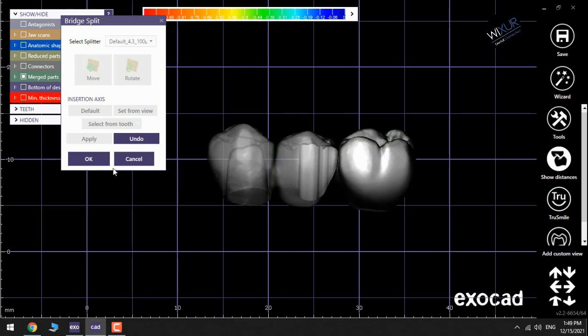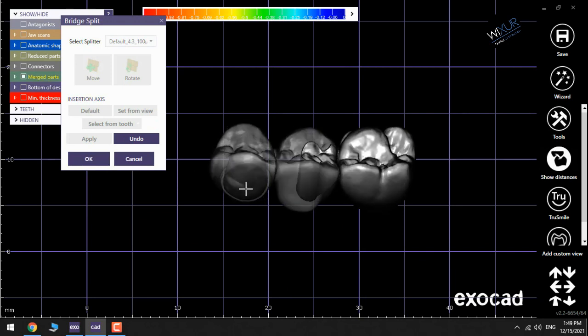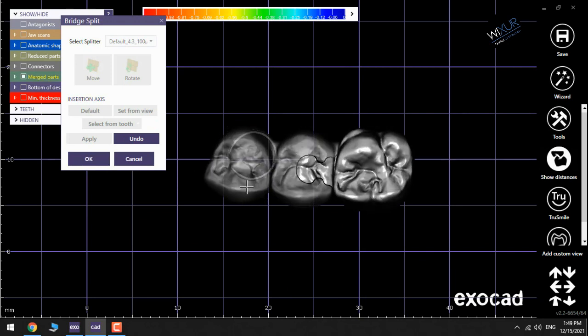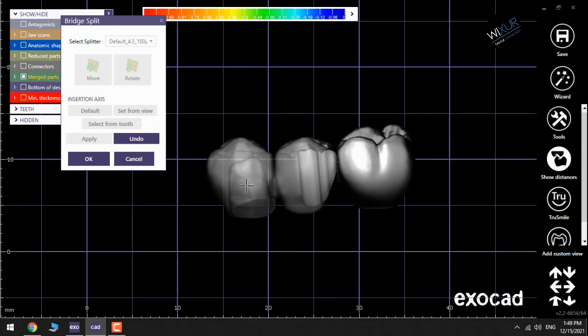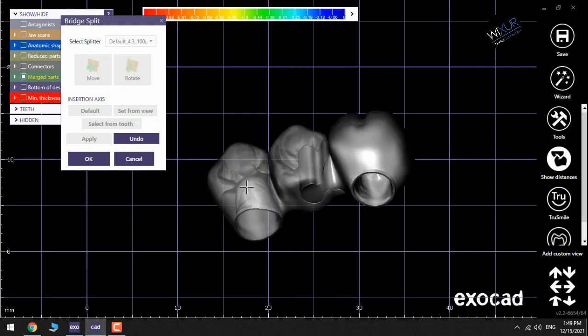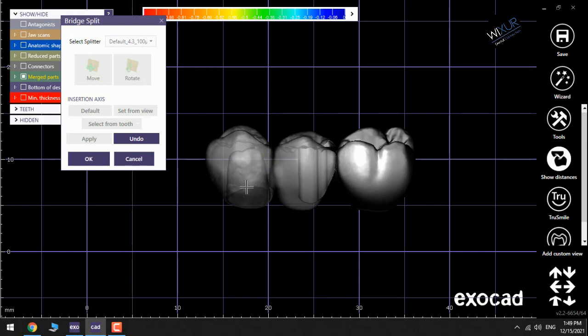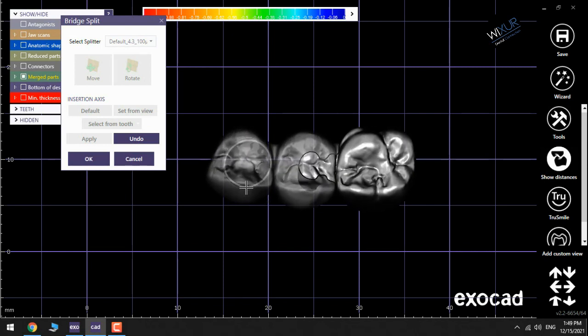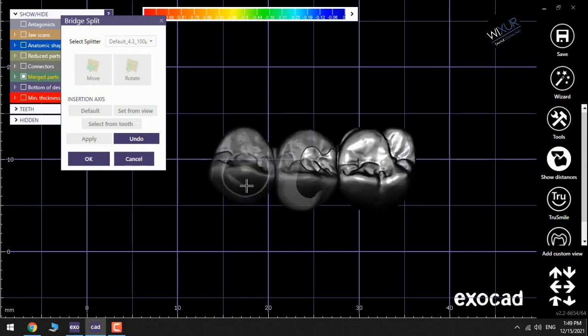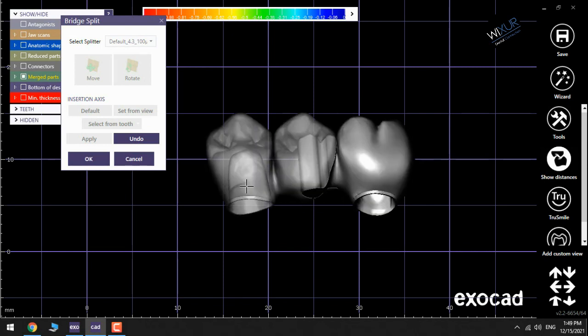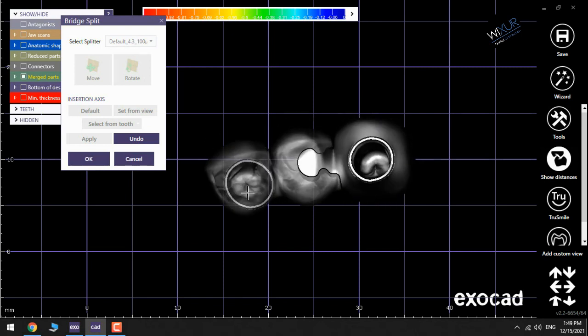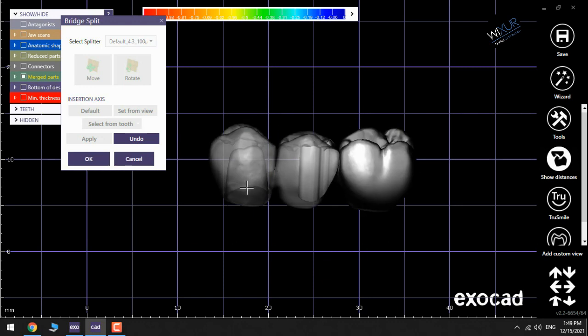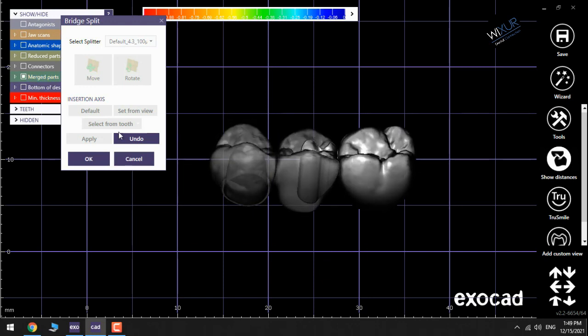Be very careful where to put the splitter because you may lose some important parts. Choose the desired splitter and position it. And as I said, take extra care not to position it in a way that certain parts of the bridge will be too thin after cutting or during the milling.